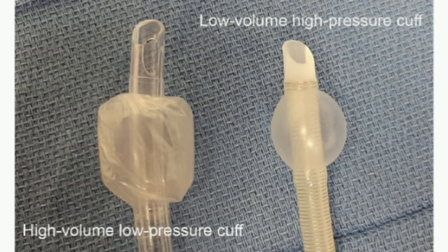The endotracheal tube cuff pressure must be in a range that ensures delivery of the prescribed mechanical ventilation tidal volume, reduces the risk for aspiration of secretions that accumulate above the cuff, without compromising tracheal perfusion. A cuff pressure of 20 to 30 cm of water is recommended for the prevention of aspiration and ventilator-associated pneumonia (VAP).